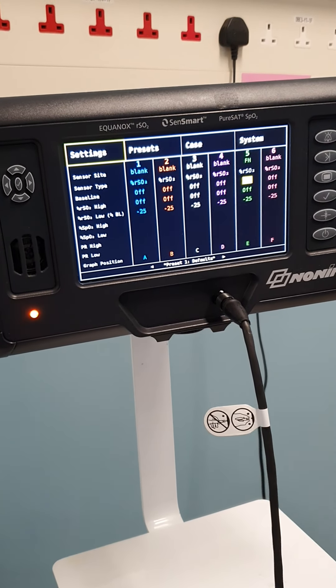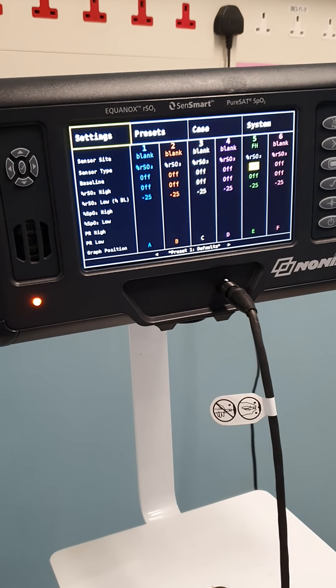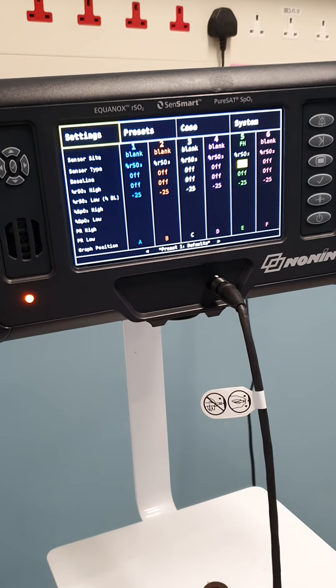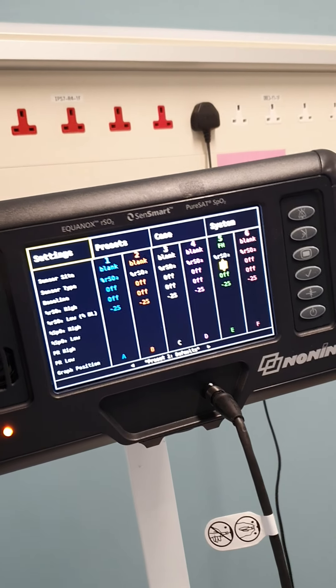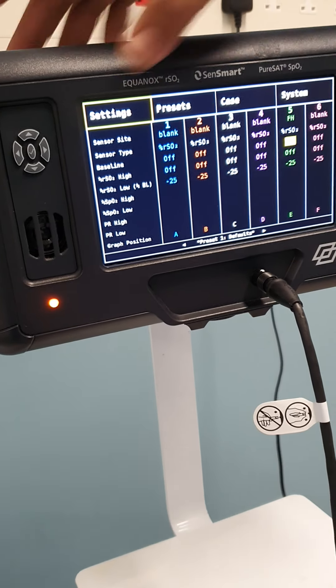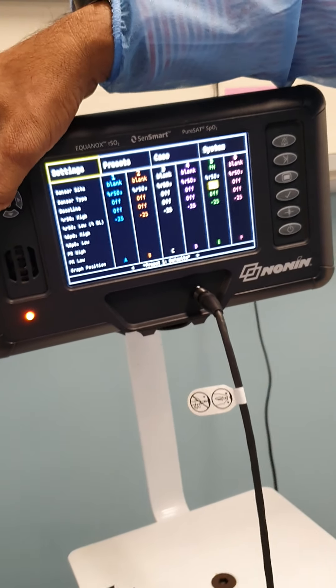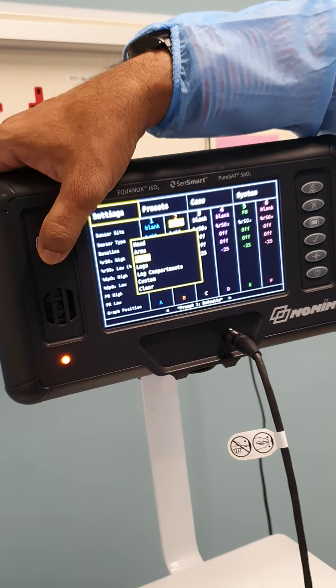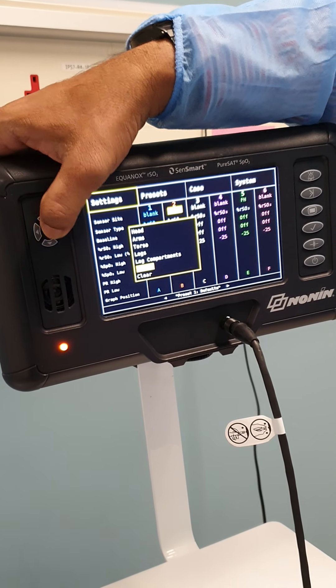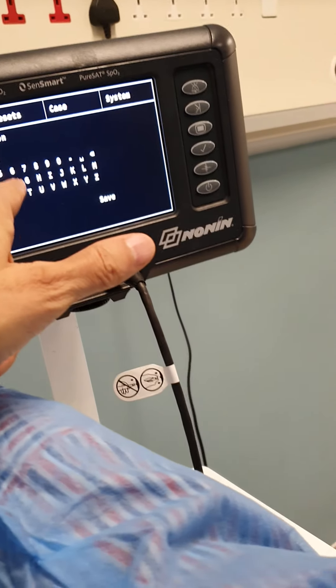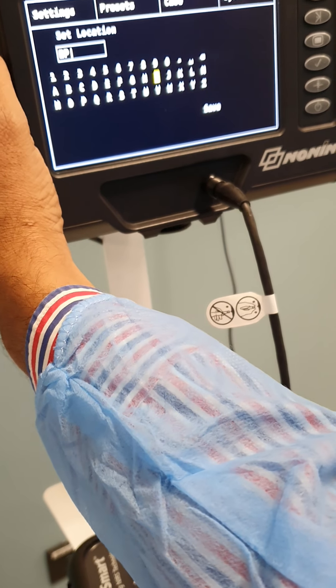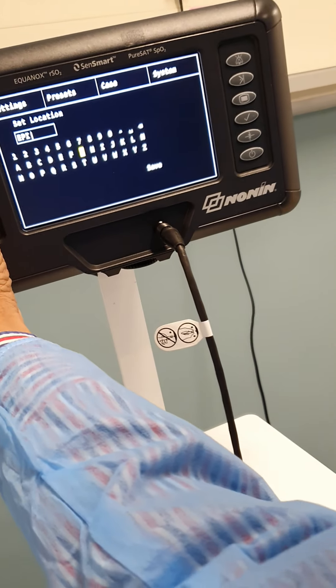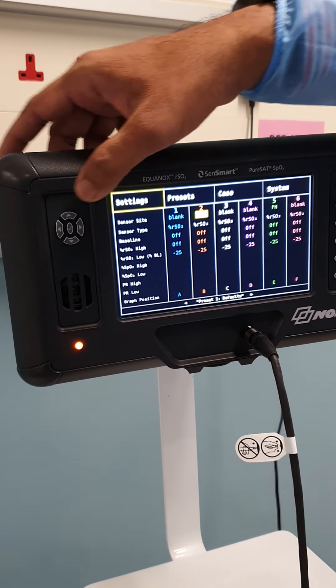You can see that we have alarm limits. Now you're telling that we want to select the somatic. Let's go custom because you need abdomen. You don't have abdomen, so go custom then. And you can say epigastric for example. So let's go down and save it. So you have your epigastric. We have already set it. Let's go back now.